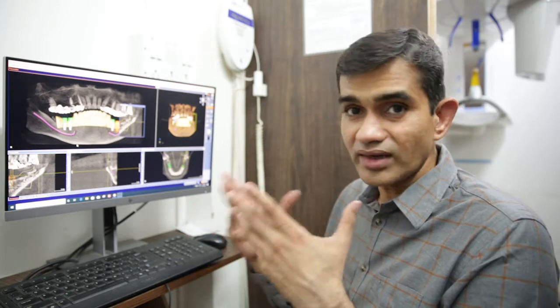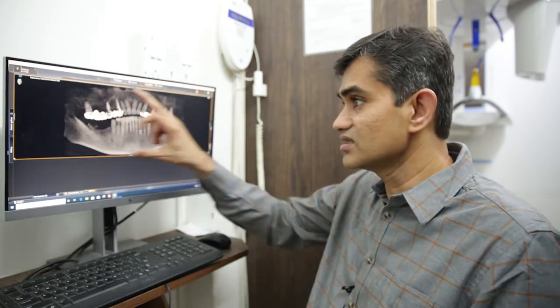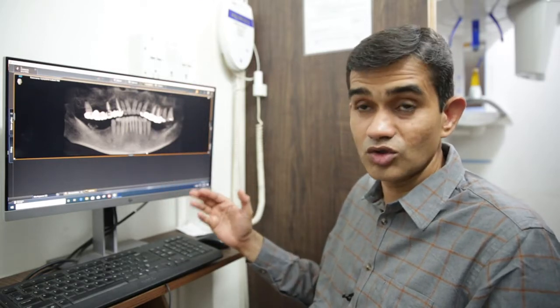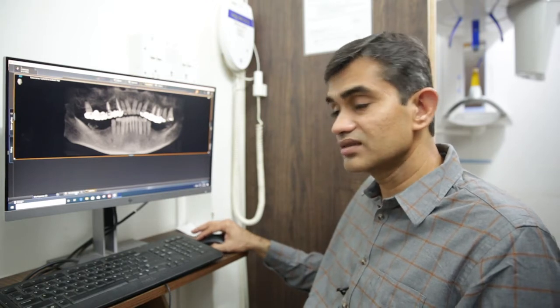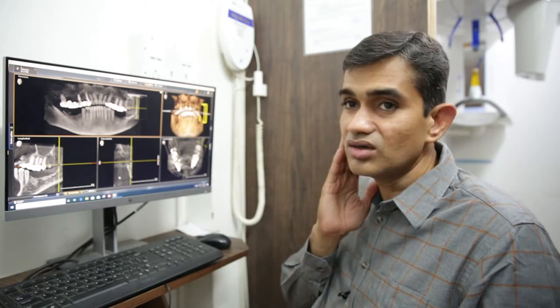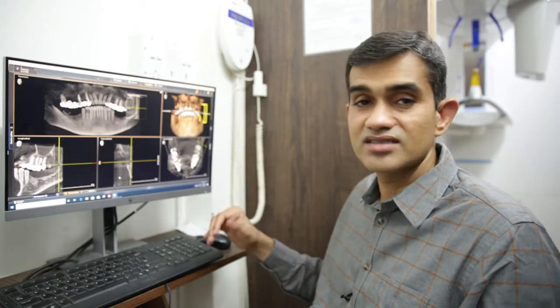Typically a 2D image or an orthopantomogram covers the entire jaw in one single film, showing the entire teeth, jaw structure, and bone structure. But when it comes to a 3D view or a CBCT plan, which is a cone beam tomography plan, it not only gives the jaw — the entire jaw is sectioned in different slices and we are able to see the entire jaw in different angles.